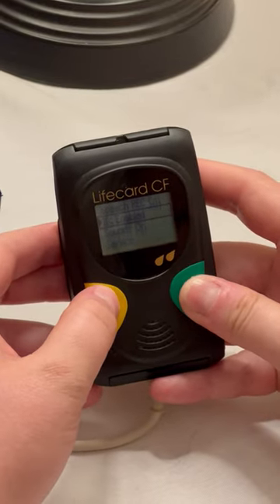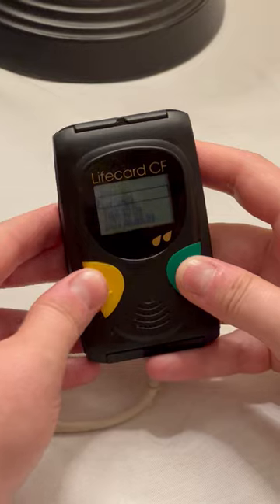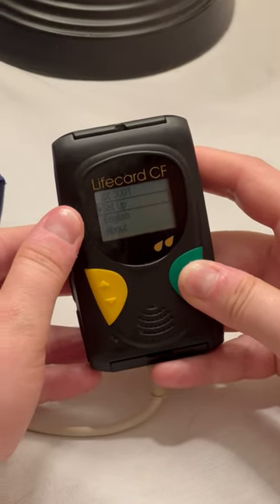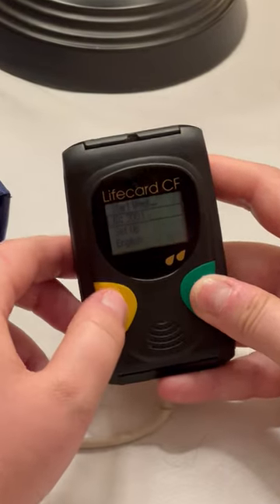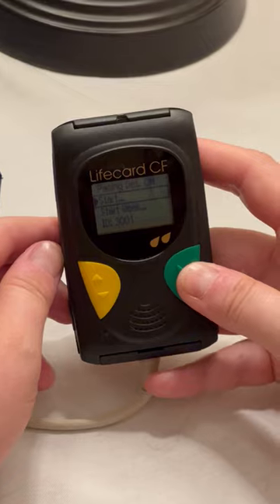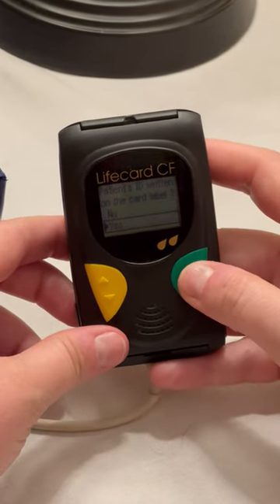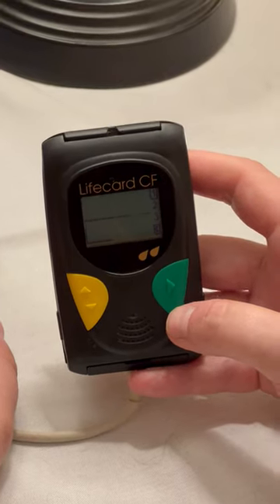Now we are set up. We can scroll up — our dates, everything is set. Go to the back menu and that takes us to home. Now we have the correct ID for the dog, 3001, which was provided by the research. I will scroll up to start. My ID is on the label, and that will take us back to our ECG recording. That's it.